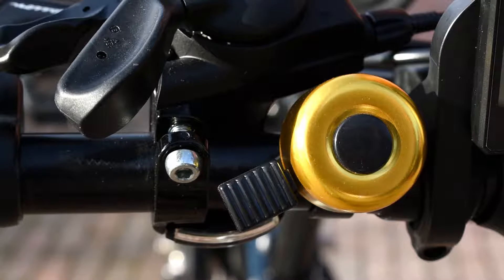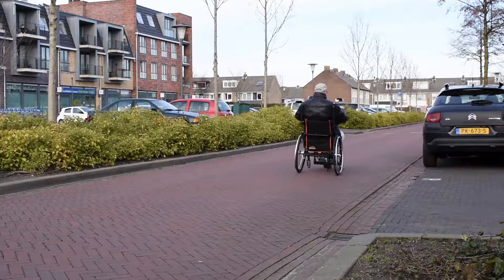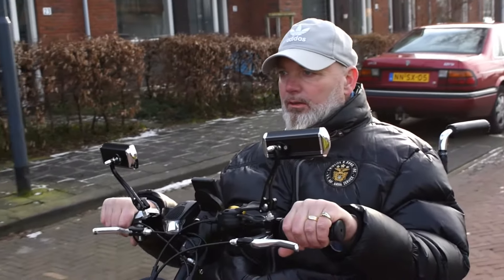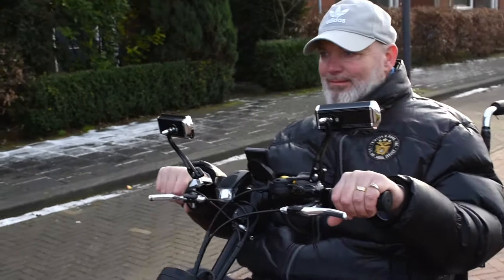The attachable bike offers the same comfort and ease of use as that of a conventional mobility scooter. The disadvantages of a mobility scooter, such as cold legs and loss of fitness due to sitting, don't occur when cycling with the EasyLegs Connect. You're exercising yourself, which is of course better for your overall health.